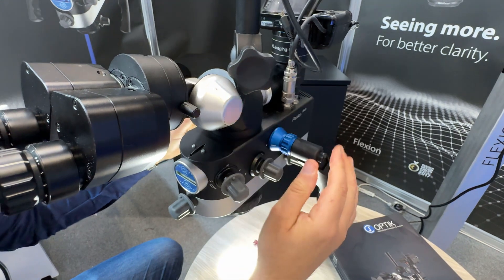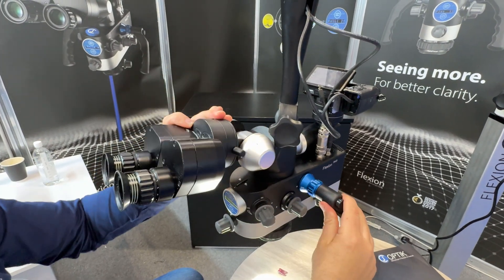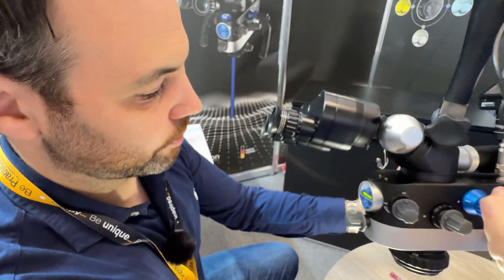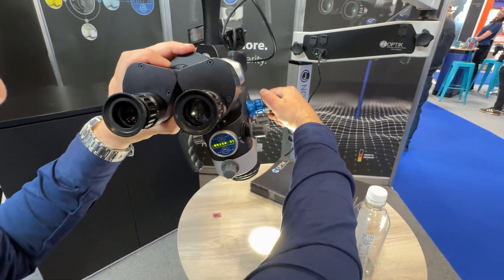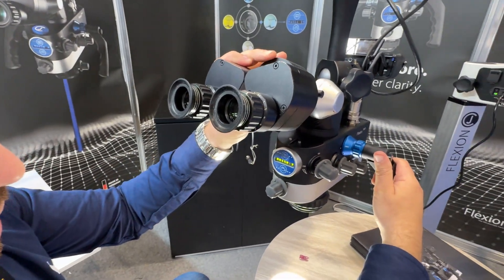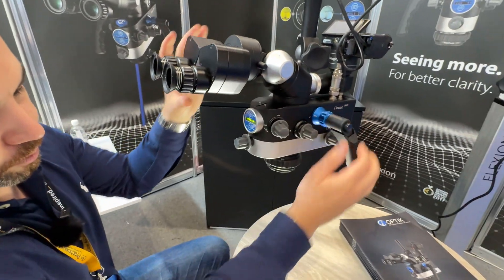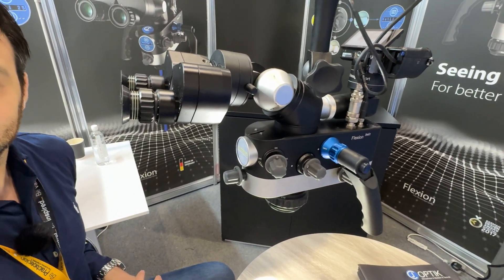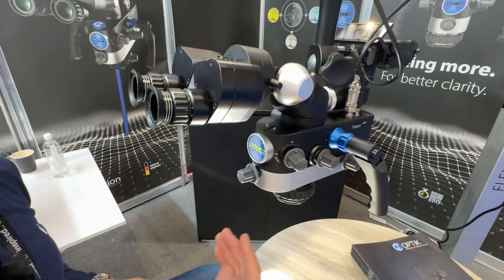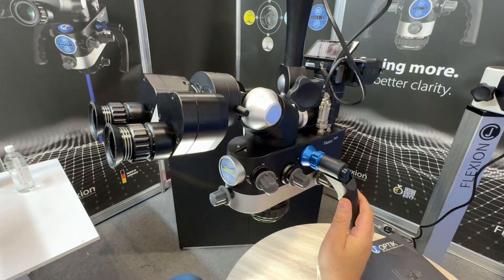We've got a 180-degree inclinable binocular as standard now on most modern microscopes, and then we can also twist left and right. So if we were at an angle we could still be in a fixed position here with the binocular. That's another function that people who haven't got a microscope don't realise how useful it is - that kind of tilted position keeps your back nice and straight. My back murders me almost all the time.